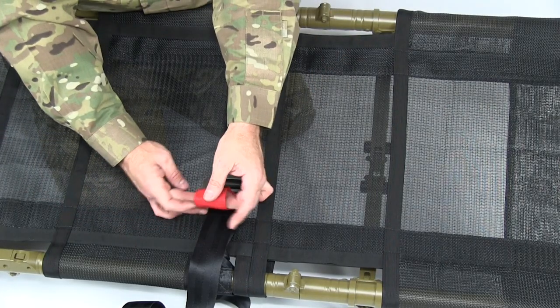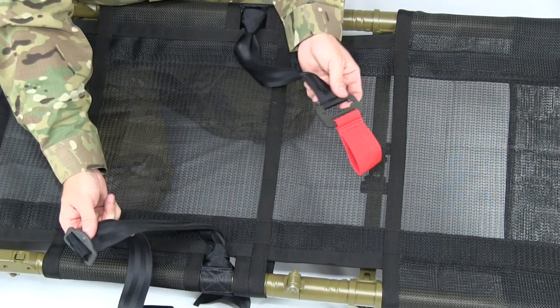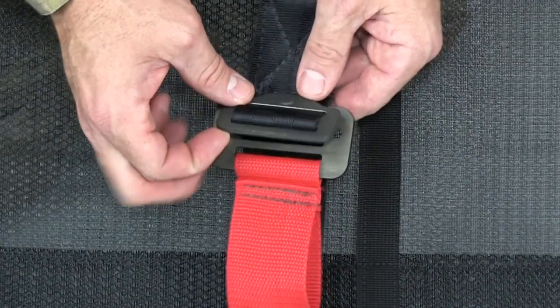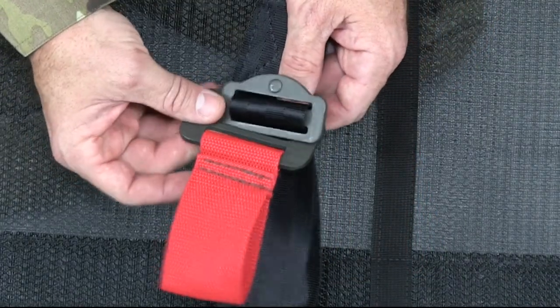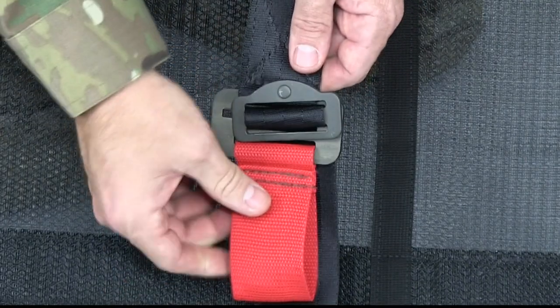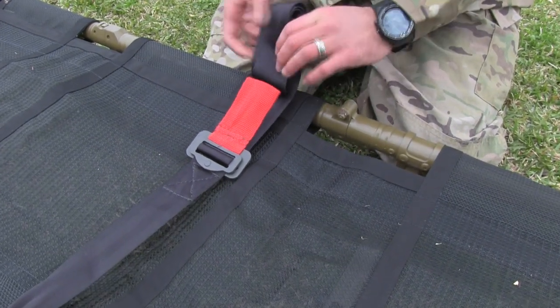To release the patient restraint straps, pull the red loop up and toward the frame of the litter until there is slack in the strap, then grasp the two metal buckles and pull them apart. Turn the top buckle sideways and slide it through the slot in the bottom buckle. Place the restraints over the patient and slide the smaller buckle through the slot in the larger one. Ensure that the raised bump on the smaller buckle is facing up, then pull the running end of the strap to tighten the restraint. Secure the loose strap under the patient or under the restraint. When stowing the restraints, roll the loose portion of the strap and slip it inside the red release loop, securing it against becoming a snag hazard.